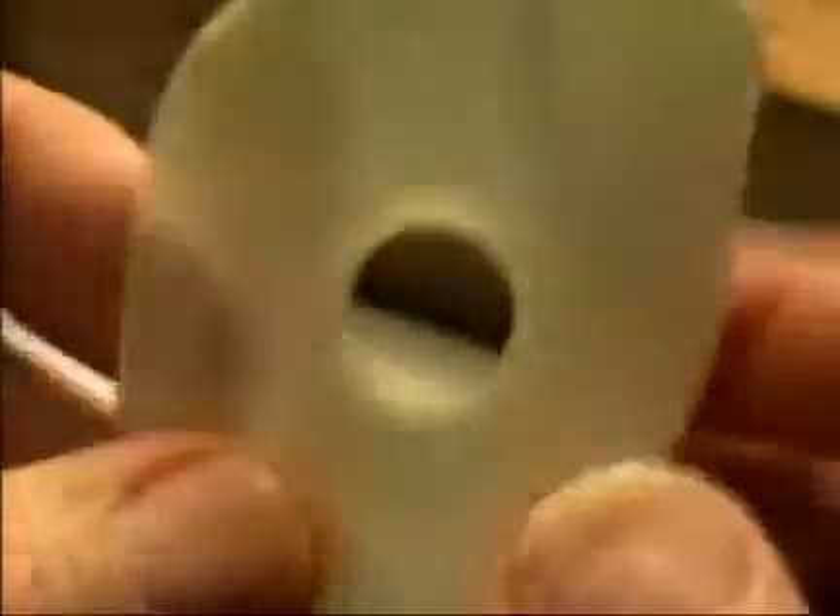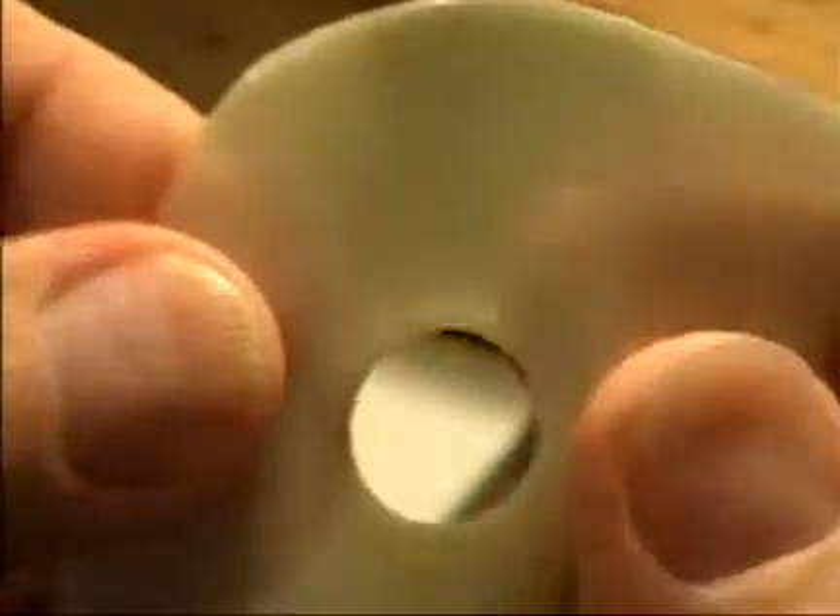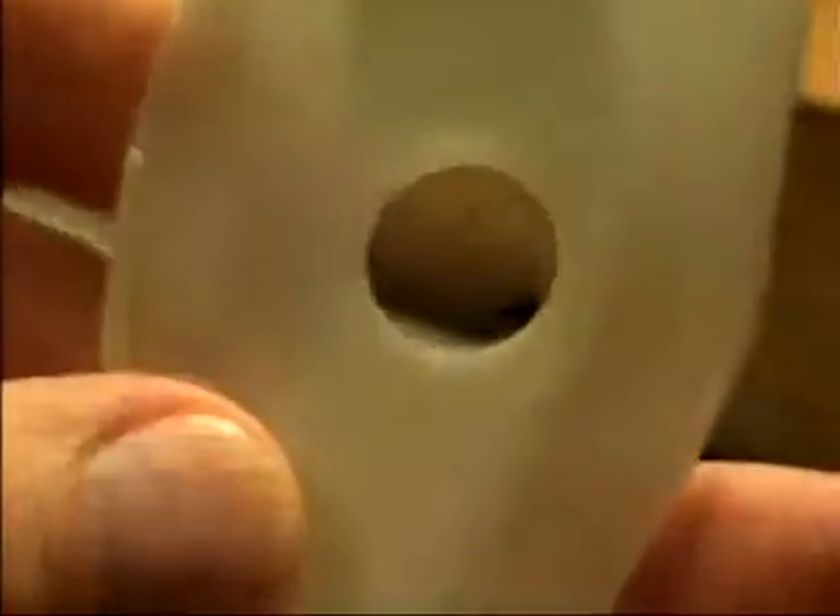Even with all these attempts, I haven't been able to get a face shield to function like they were when made 20 to 30 years ago. Basically, the secret ingredient is approximately a millimeter thick of plastic, and that gives it physical strength, rigidity, and it holds its shape up against the Phoropter body and stays in place when the patient's face is up against the face shield.